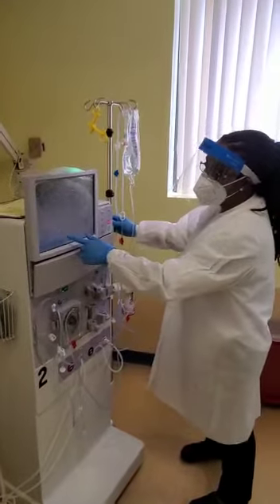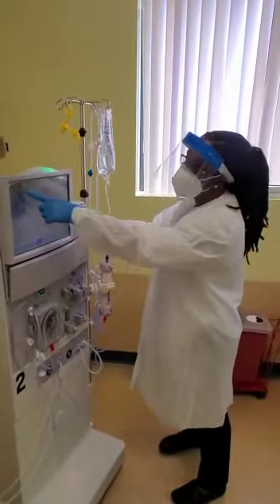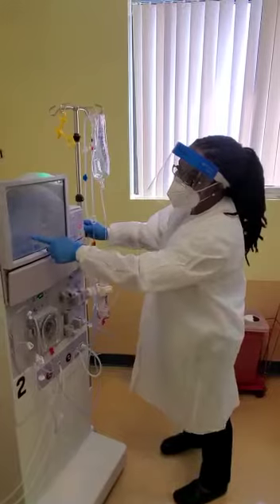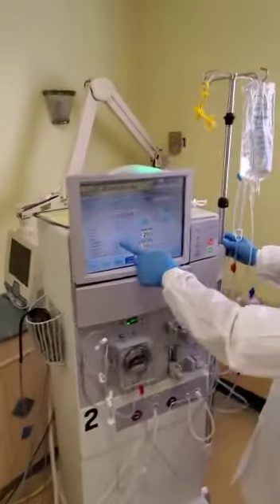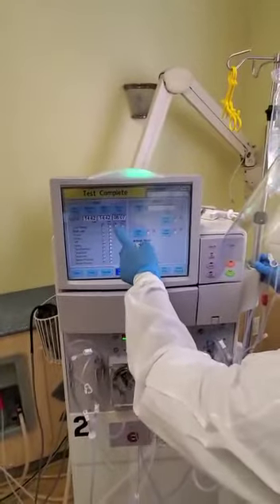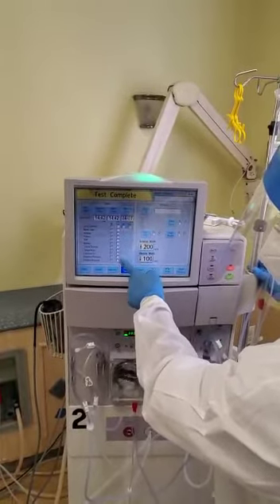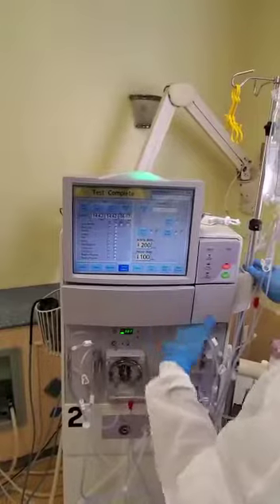Now that our machine has completed the test, it will say 'test complete.' You will also see blue checks all along here under OK — that means all the tests have been passed. If anything failed, you would see a red X like this one under the arrow, and it will tell you what the machine failed.